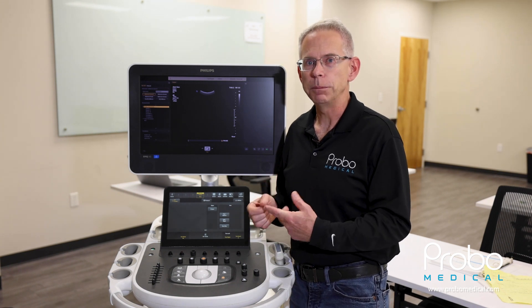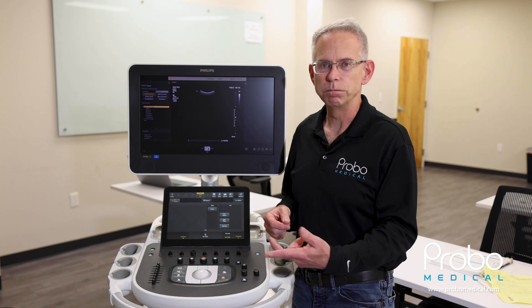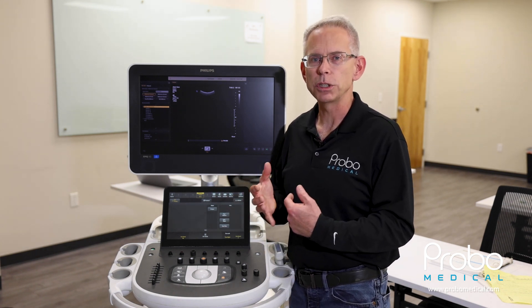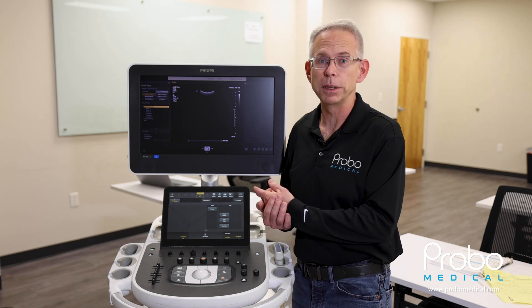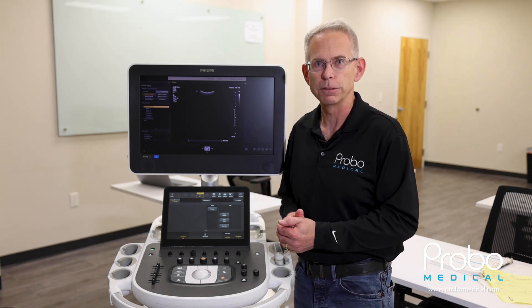So making a preset backup will save all that data, and then if software ever does need to be loaded or a hard drive has to be changed, you are able to get the machine back to the state that it was the day that you made that backup. Very useful tool. We don't recommend it on just the Epic — we recommend it on every ultrasound machine you touch. But today we're talking about the Epic and the Affinity.